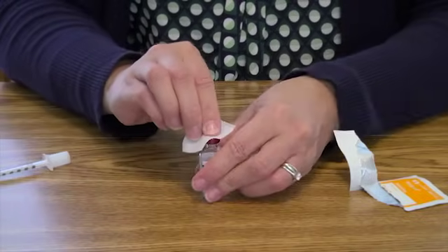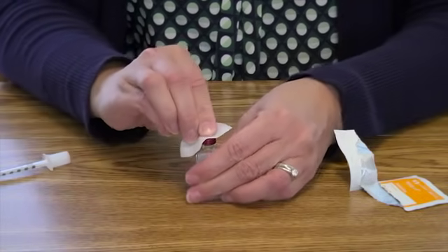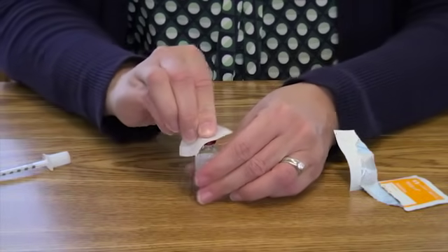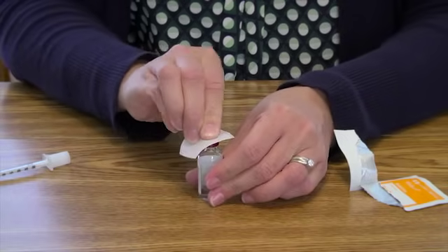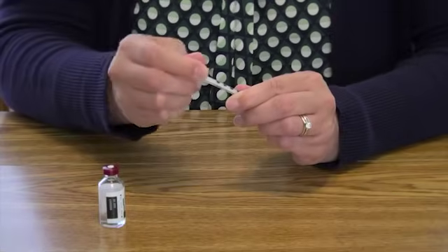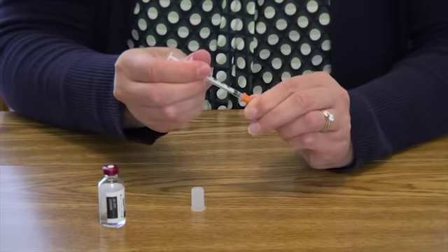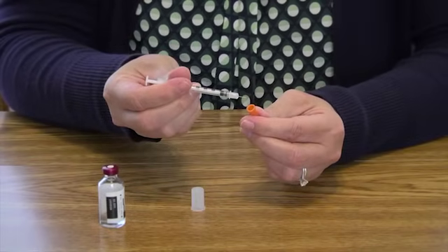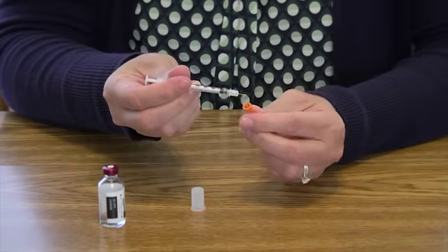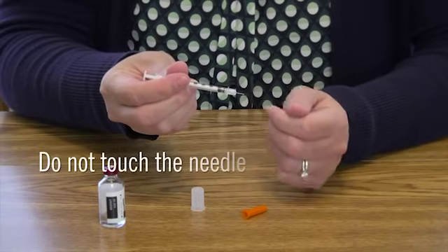If opening a new bottle of insulin, remove the plastic cap and wipe the top of the bottle with an alcohol wipe. If using a bottle that has already been opened, you will still need to wipe the top or rubber stopper with an alcohol wipe. Remove the caps from both the top and bottom of the insulin syringe — you may need to twist the cap to get it off more easily.